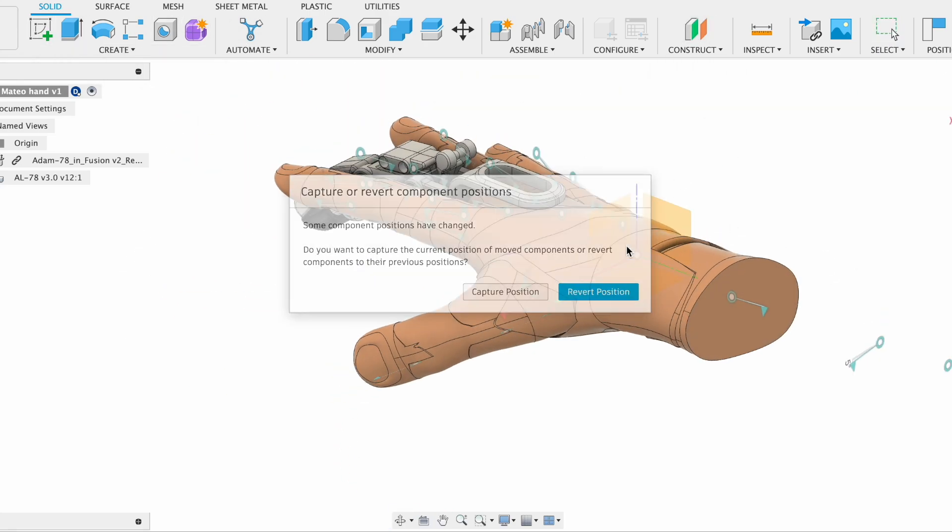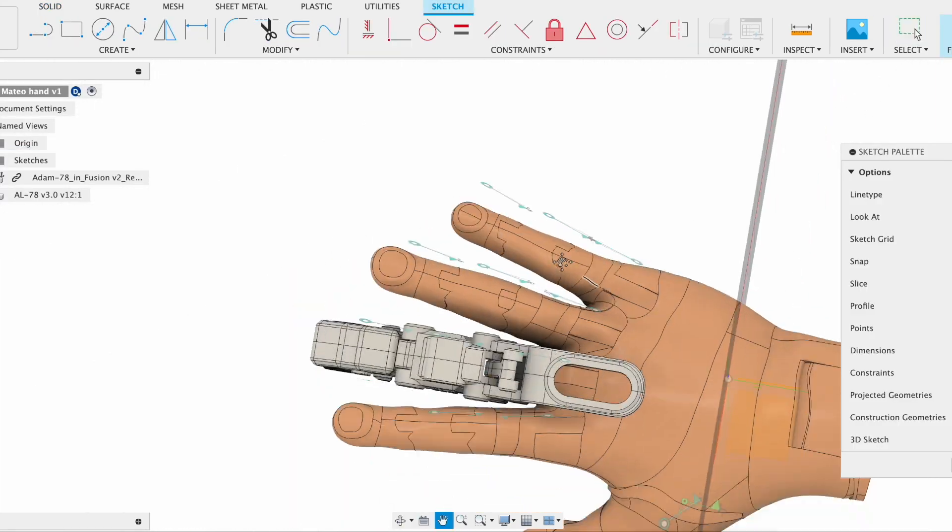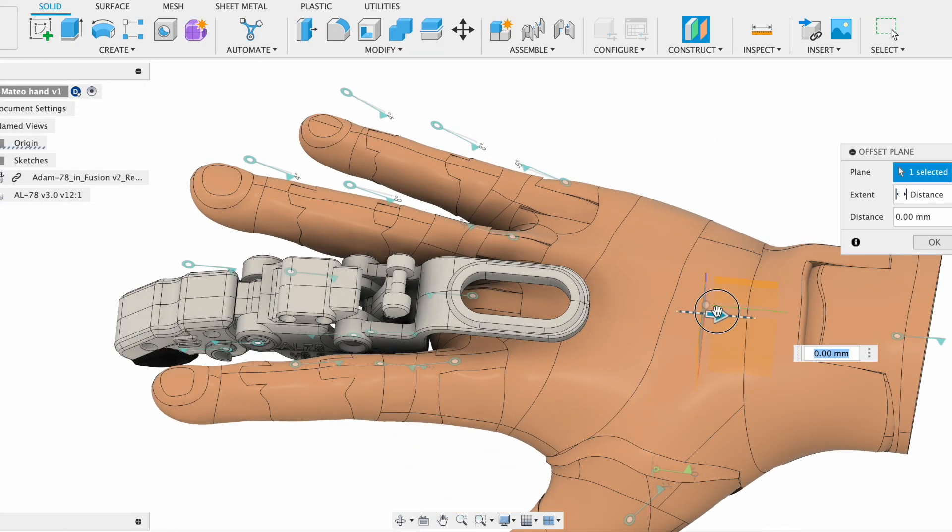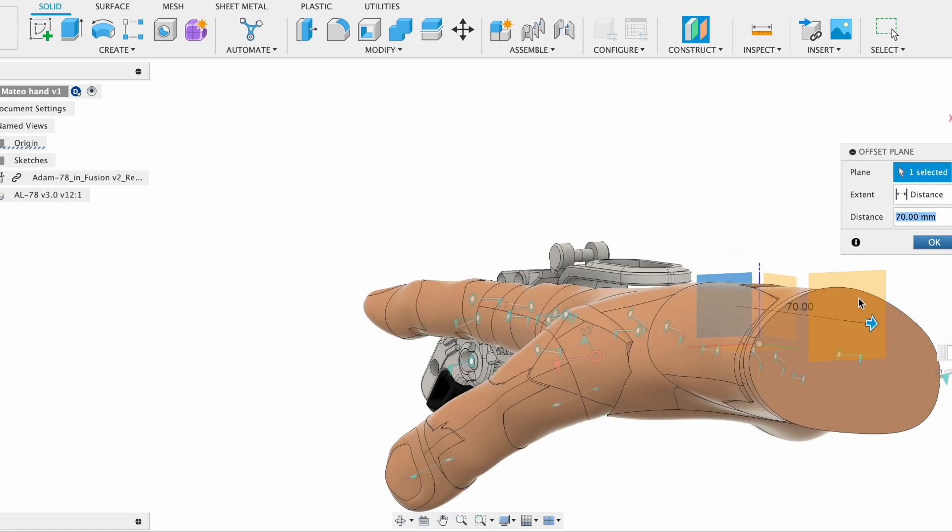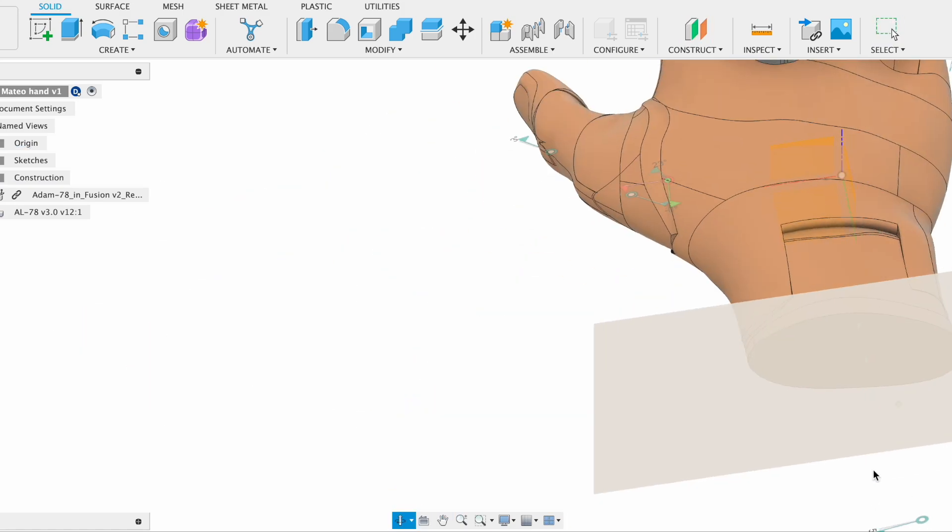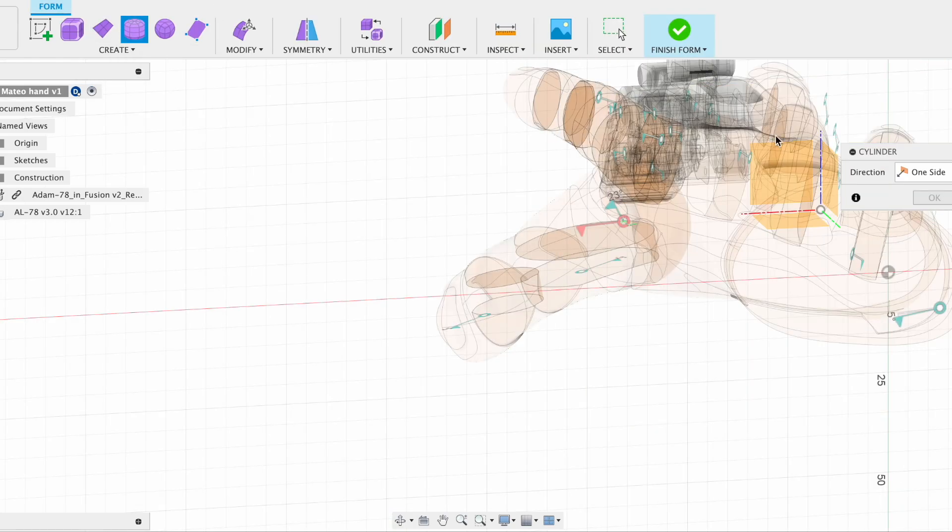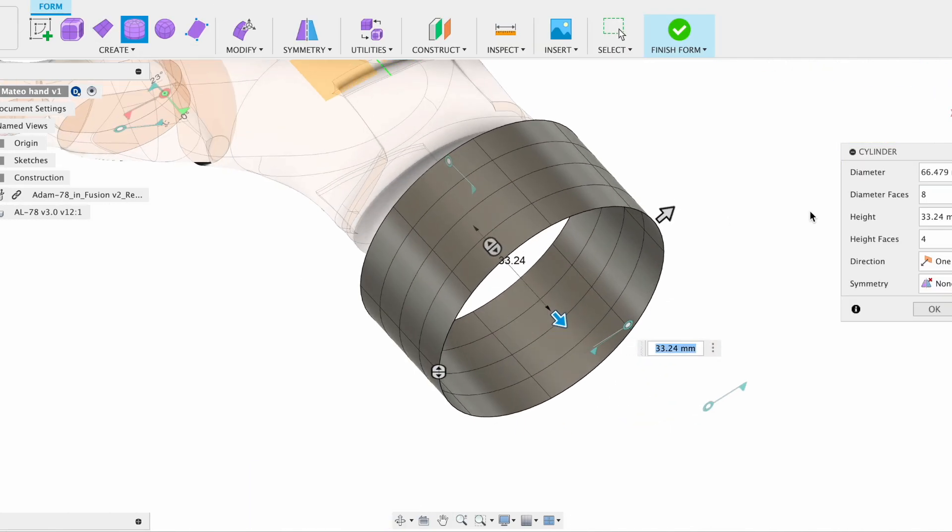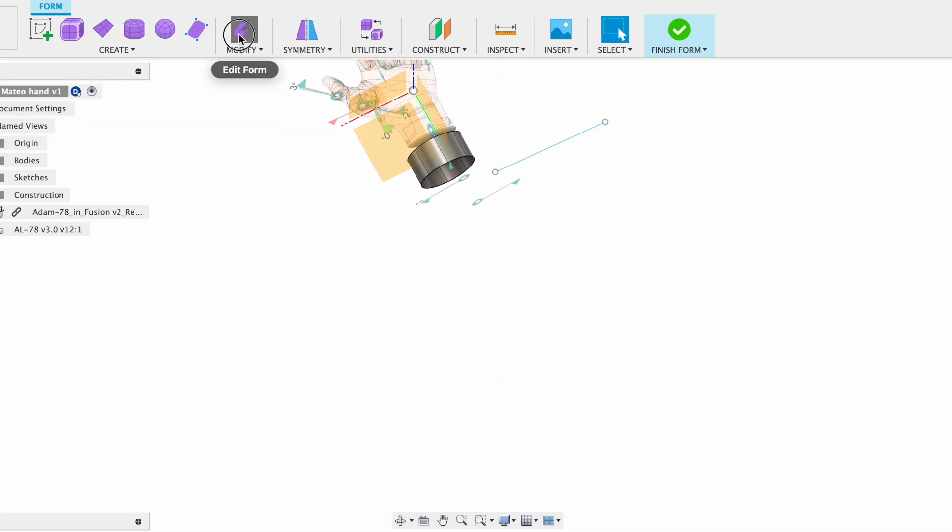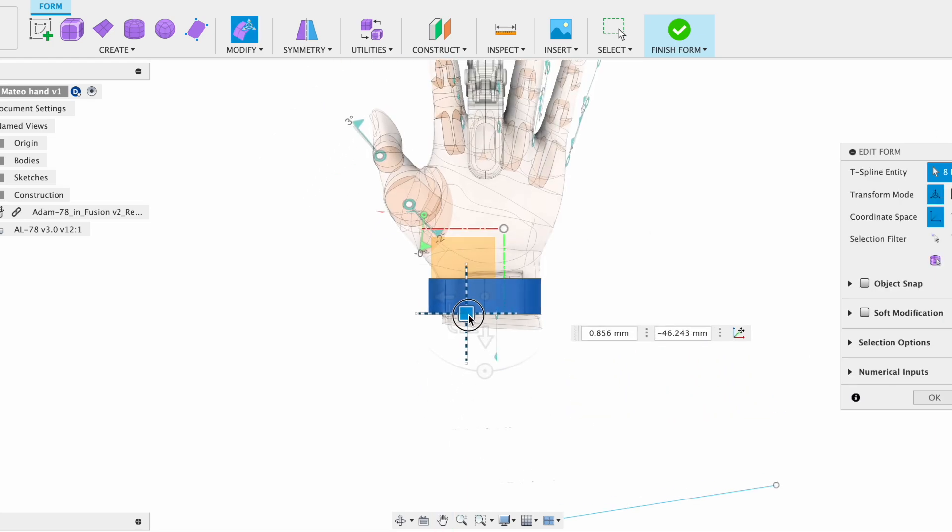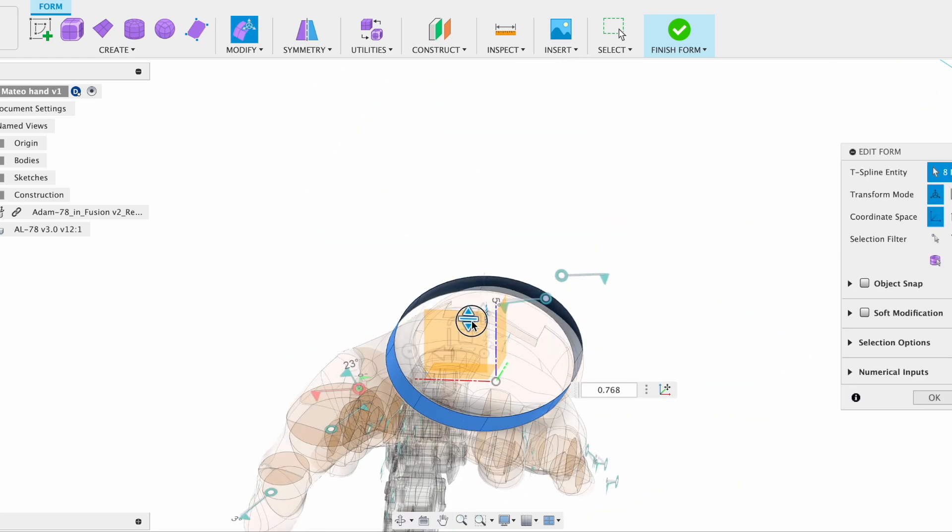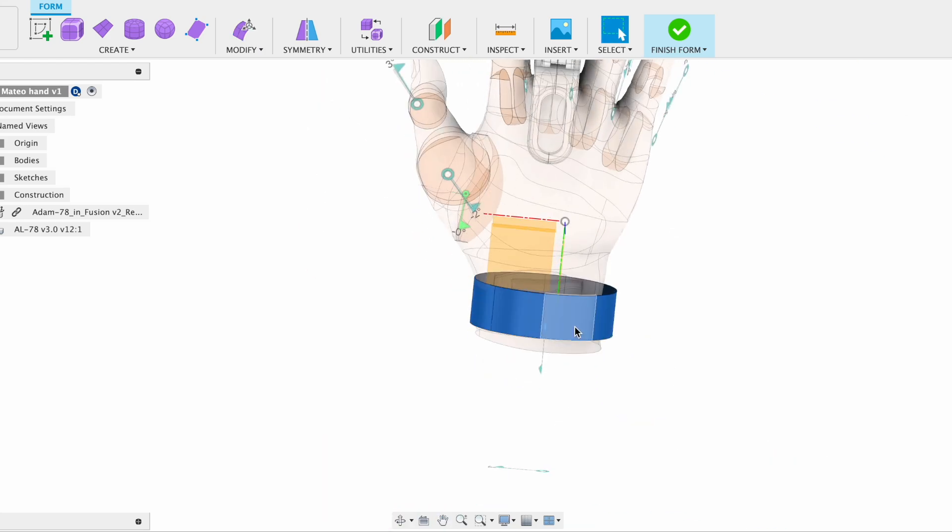Since we don't have any part made with the wrist attachment that's going to act as an anchor so the string can be connected, what I'm doing right now is using the form function of Fusion 360 to create some sort of wrist attachment that will probably be replaced with velcro in the future. This is just to show the position and maybe the shape of the wrist attachment in the future.